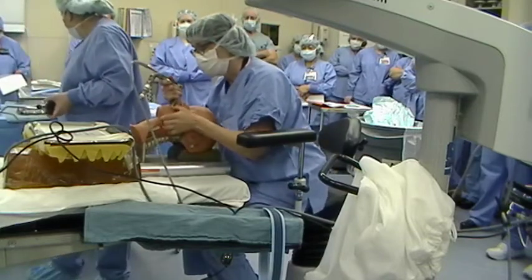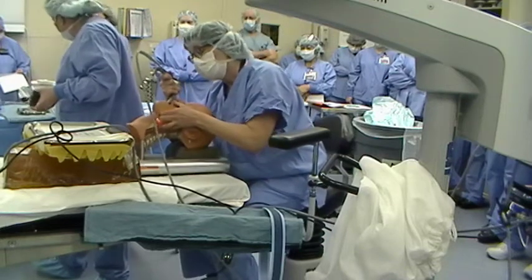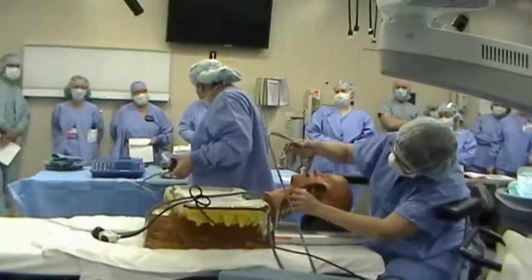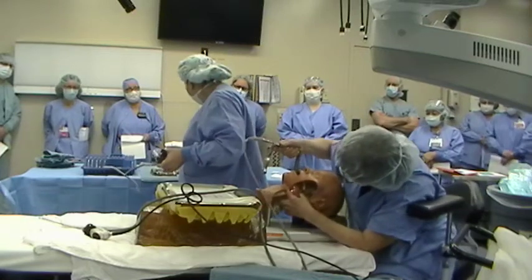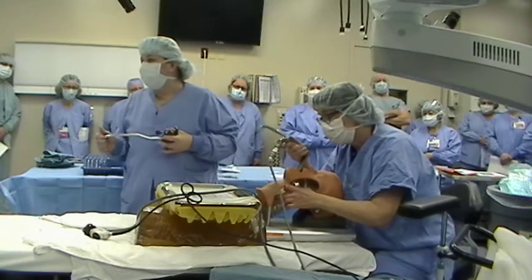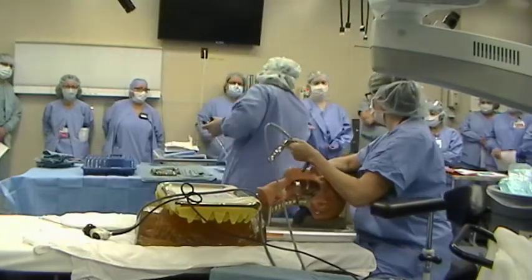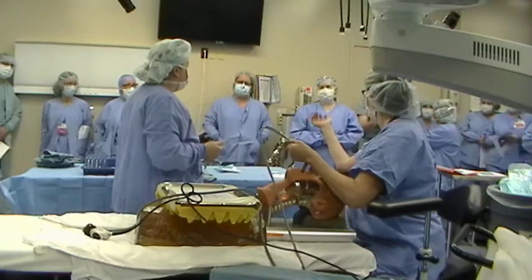The other things that come in your pan: you're going to get a large biopsy. You're also supposed to get what they call a velvet tip or velvet eye — it's got a rounded tip, not a sharp edge. There should be a short one and a longer one. Then there are two controlled suctions with a finger hole so you can control the strength — usually a size five and a six in the set. We do have a smaller suction in peel pack separately, like a four if you need it. Also on the cart in peel pack are the triangular graspers — there's a left and a right. They're called sweethearts; they look like a little heart at the end.